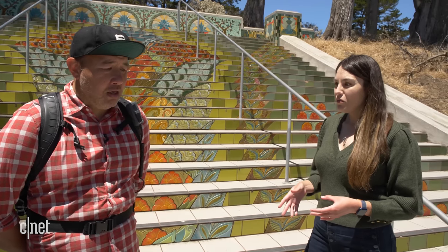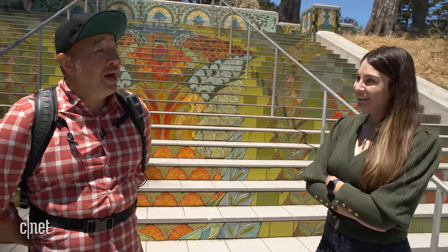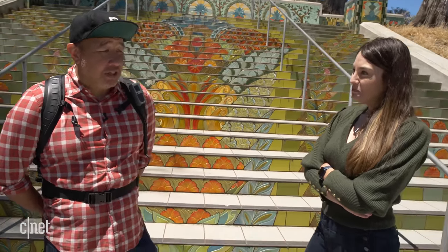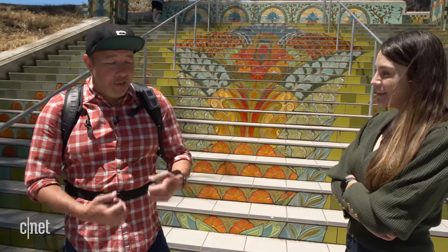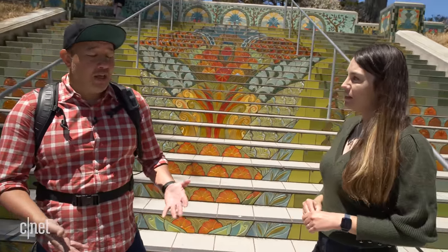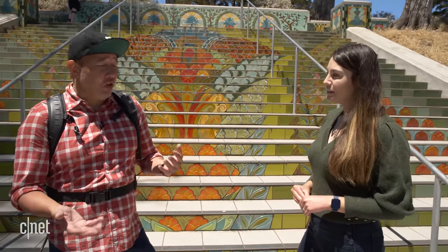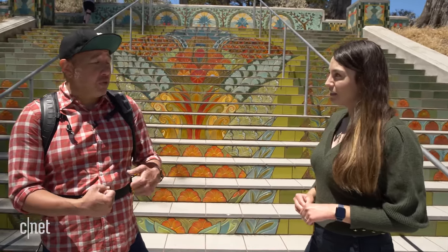Tell me a little bit about why you would potentially want to use something like this. So I tore my ACL many years ago. I had it fixed, but like all things, the repairs started to deteriorate in my knee. Now my knee is a little loose — I can walk fine, but it's just a matter of time when going upstairs or getting out of a car, and it starts to swell up and hurt. When we walked up with it on, I didn't feel that pain anymore — I didn't feel any discomfort.